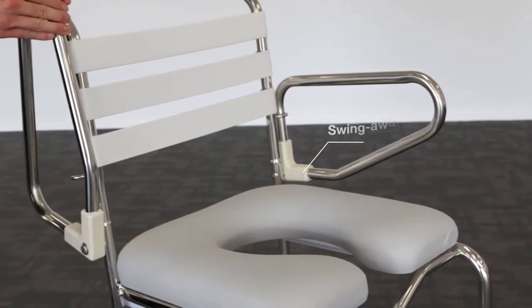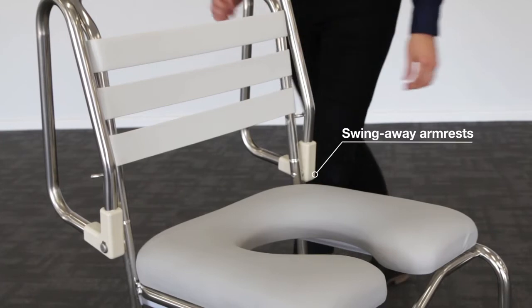Both armrests swing upwards allowing for easy side access to the commode.